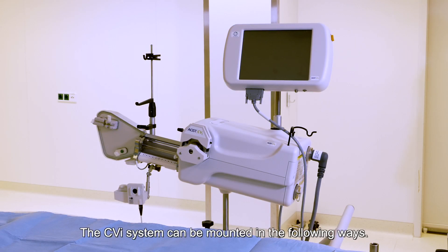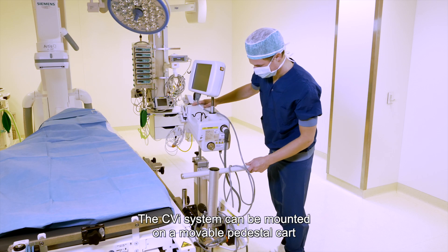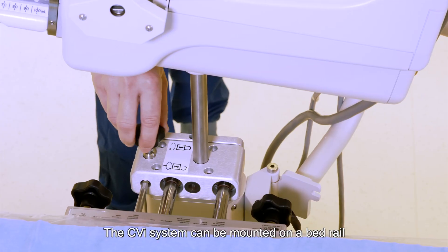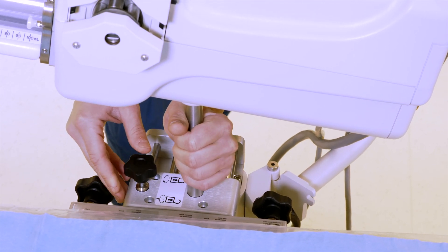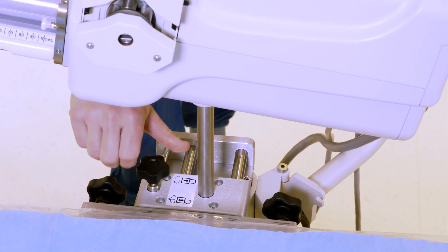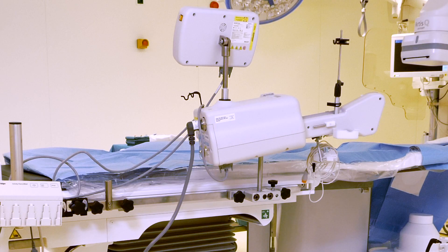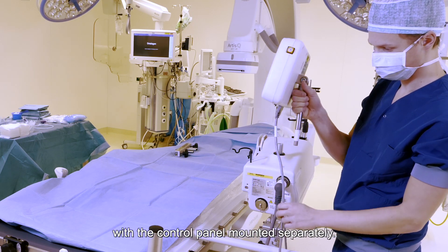The CVI system can be mounted in the following ways. The CVI system can be mounted on a moveable pedestal cart with the control panel mounted on the injector head. It can also be mounted on a bed rail with the control panel mounted on the injector head, or mounted on a bed rail with the control panel mounted separately.